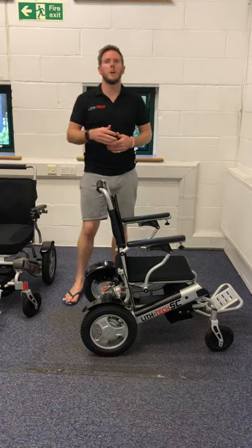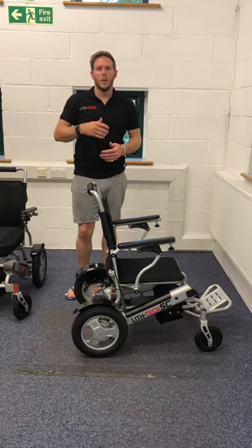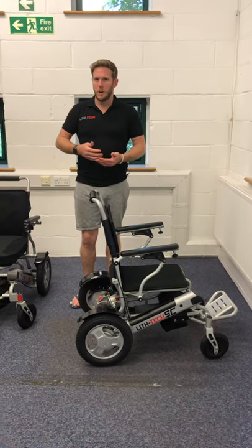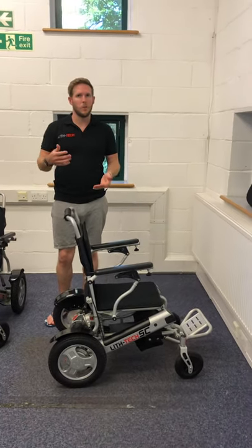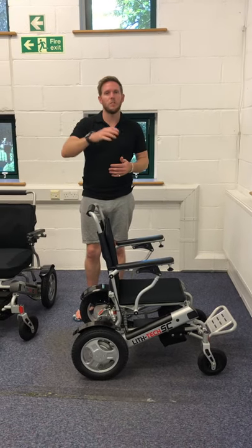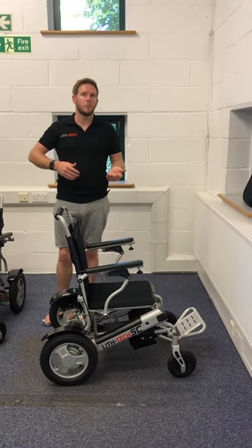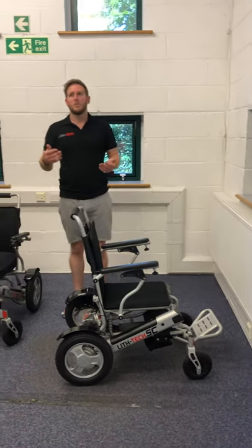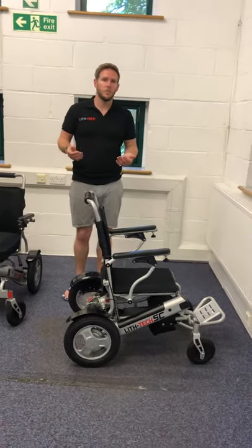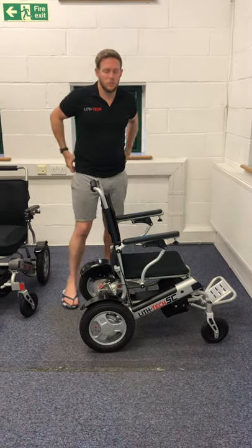A lot of customers call me saying they need an electric folding chair. I say no you don't, because that adds another five kilograms to the chair itself, making it no longer a lightweight folding chair — the electric motor needed for folding weighs about five kilos. So a 26 kilogram chair becomes about 31 kilograms, plus electric folders always break. These chairs are so easy to fold and unfold you just don't need the electric ones.